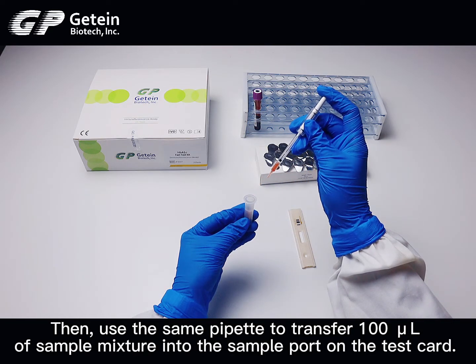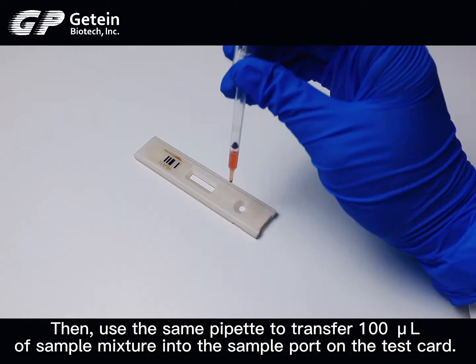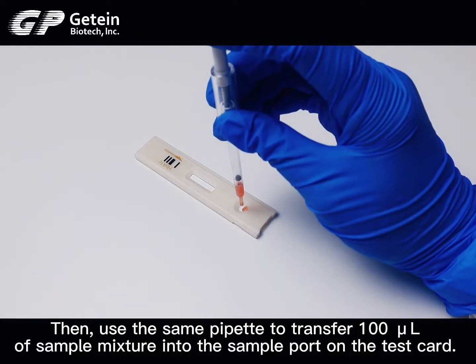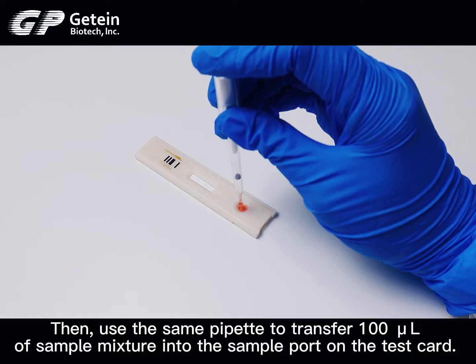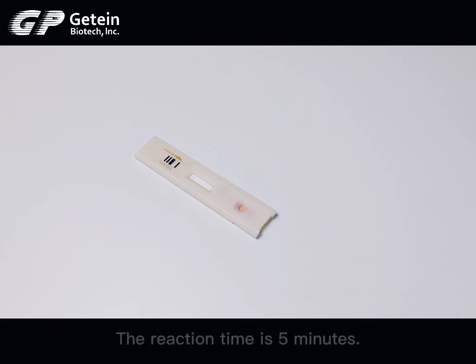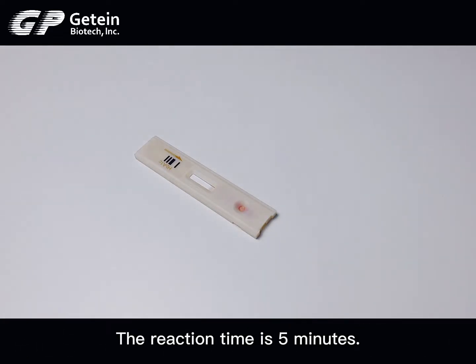Then use the same pipette to transfer 100µL of sample mixture into the sample pot on the test card. The reaction time is 5 minutes.